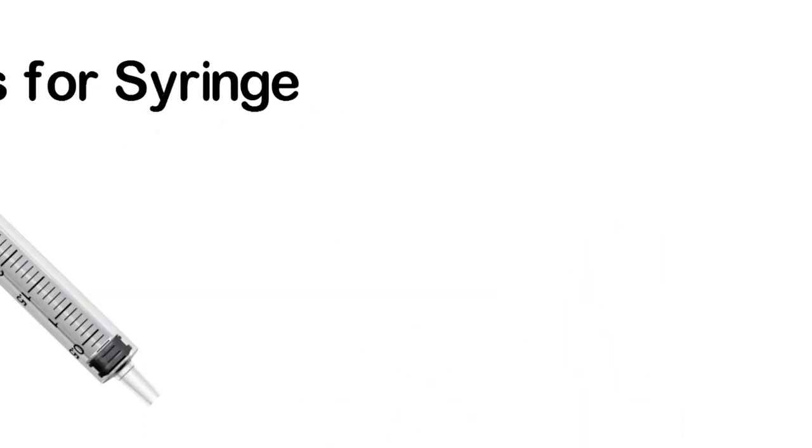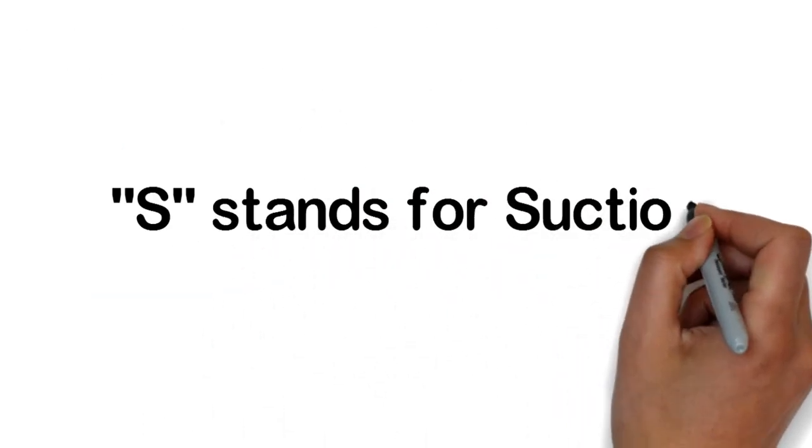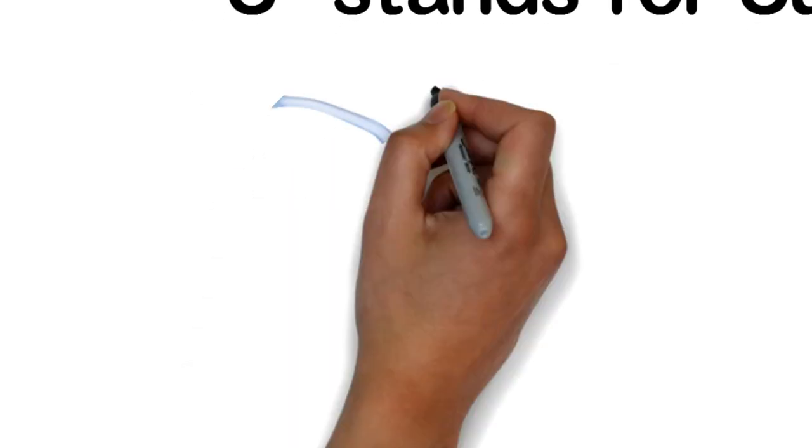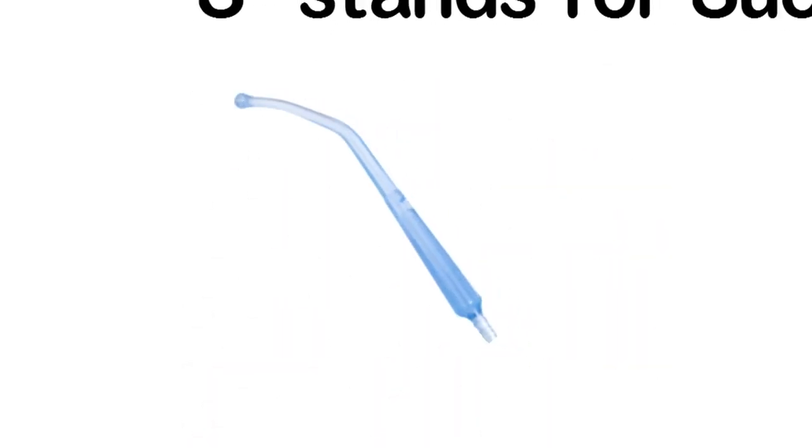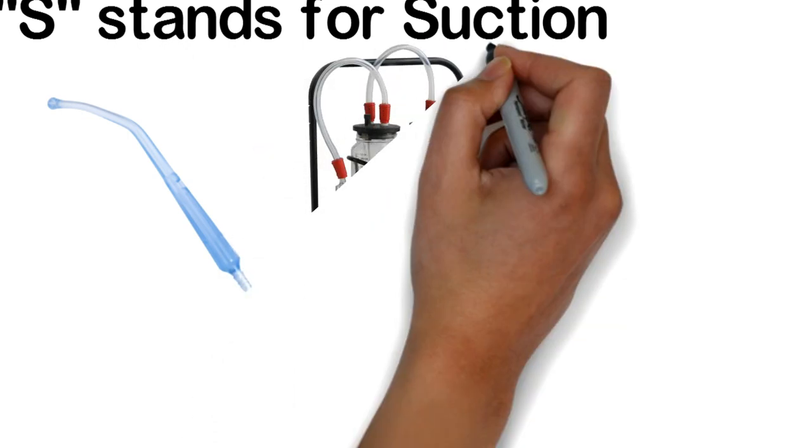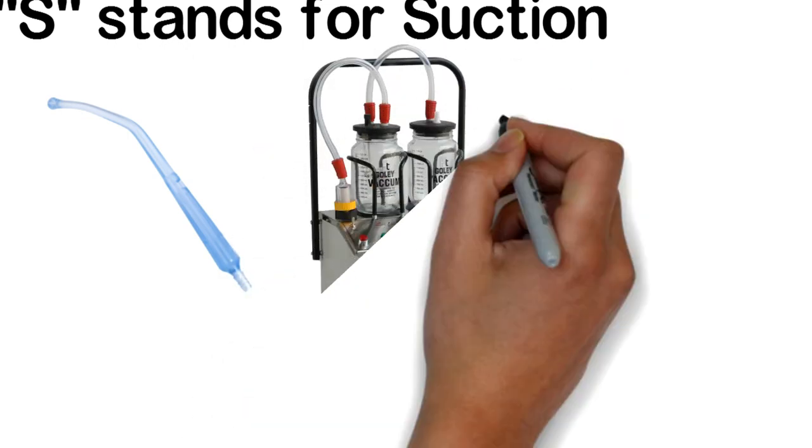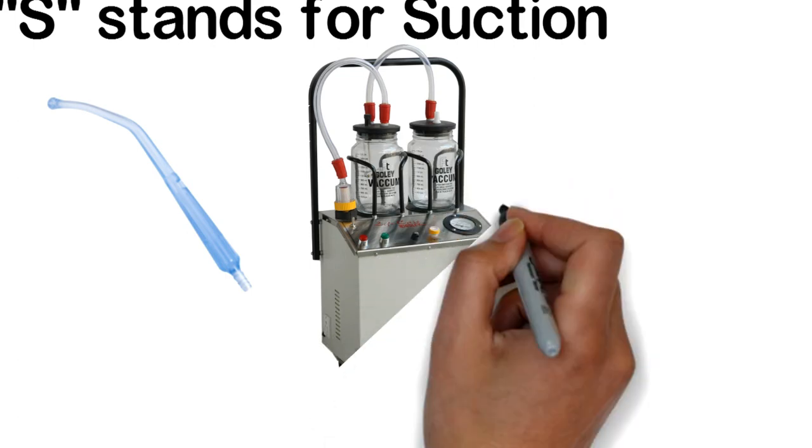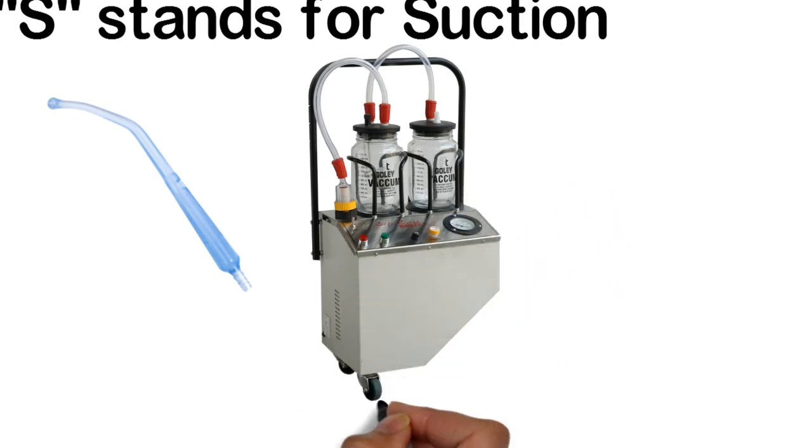S also stands for suction—actually oral and tracheal suction. When we extubate the patient, we do oral suctioning, and for oral suctioning either portable suction or wall suction at the side of the patient is needed.